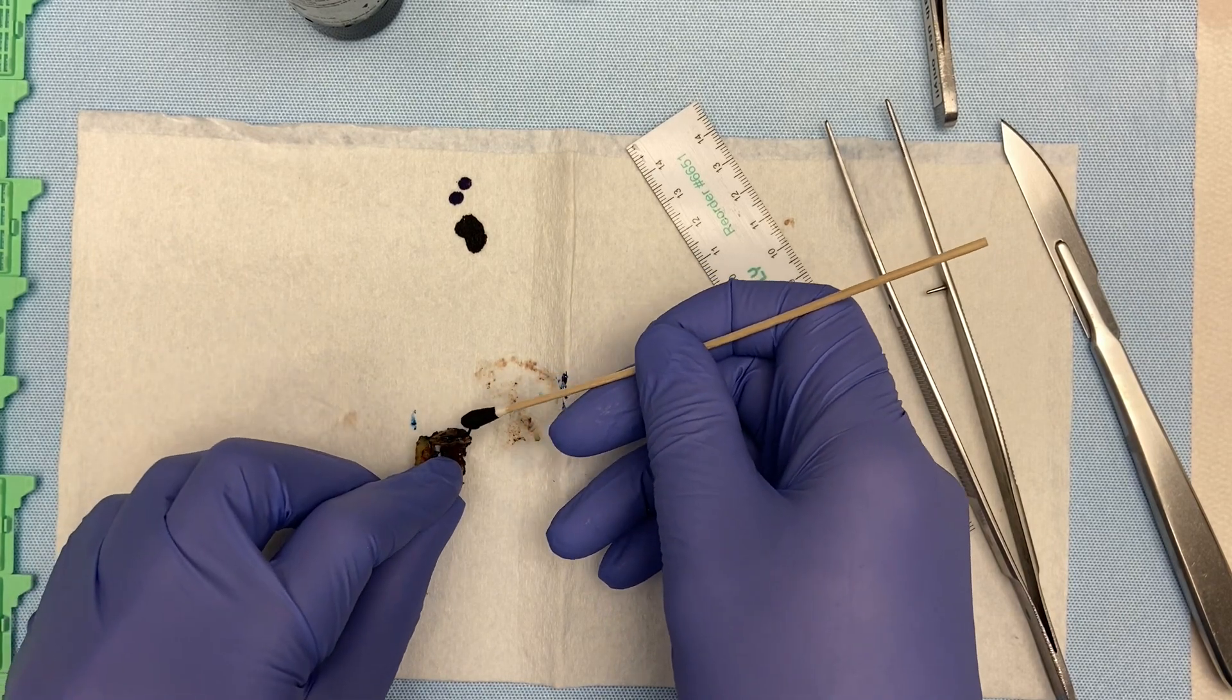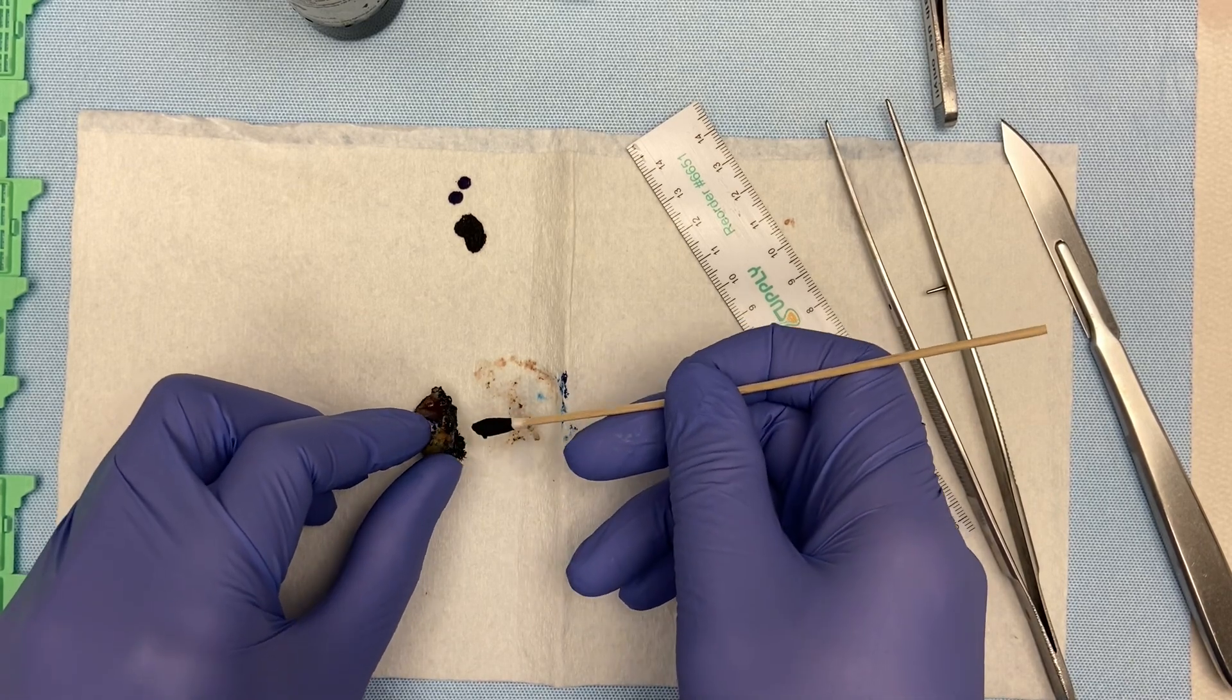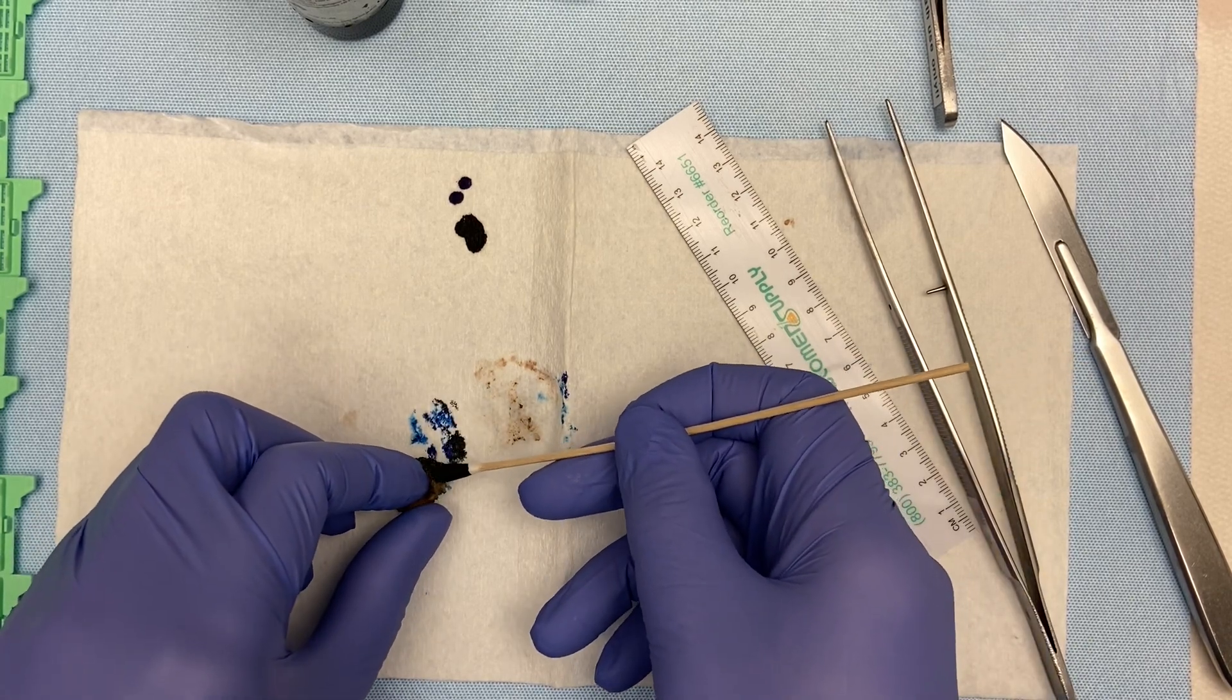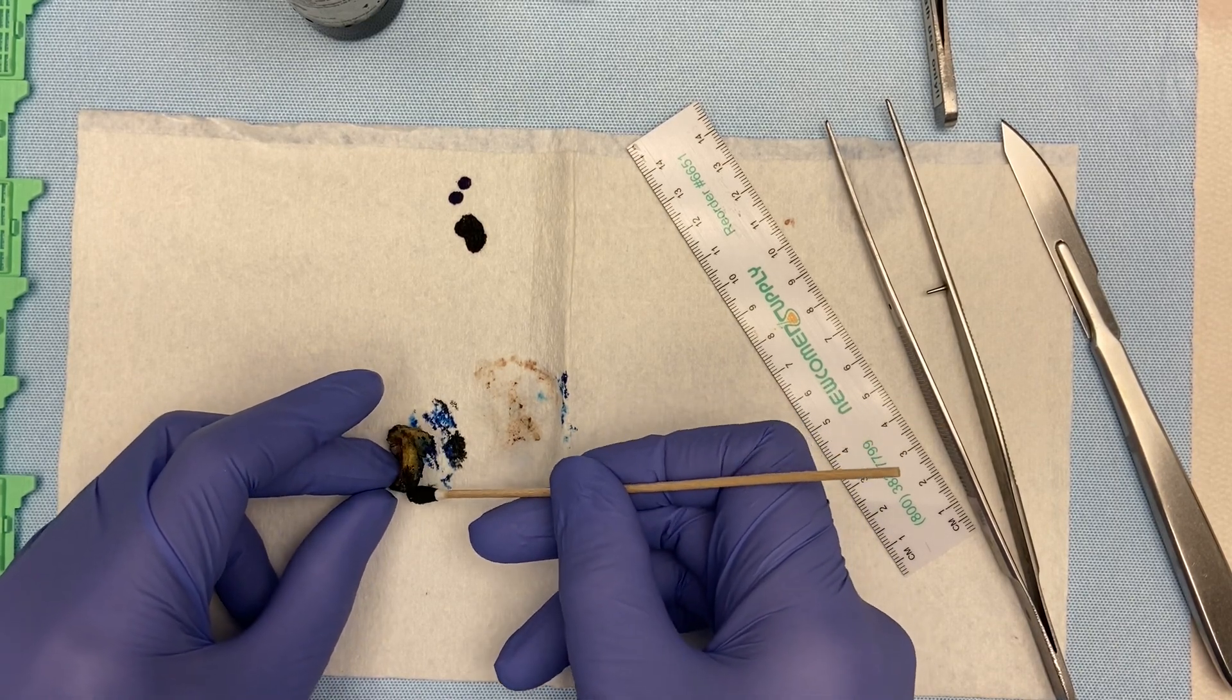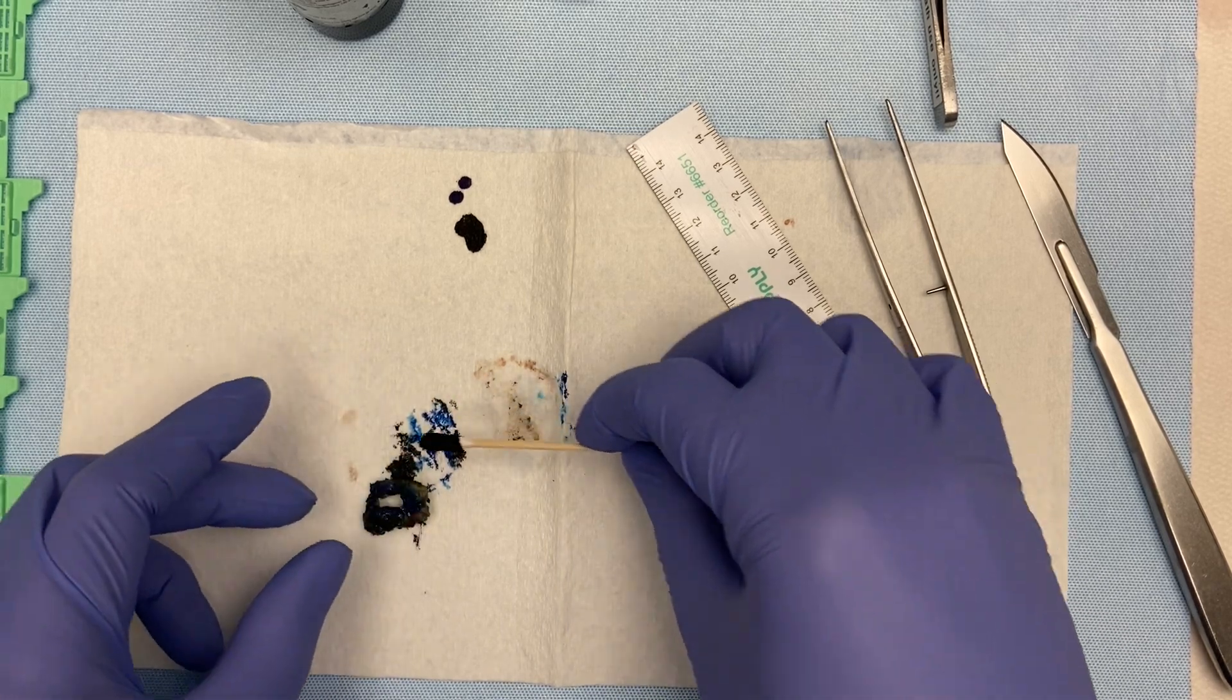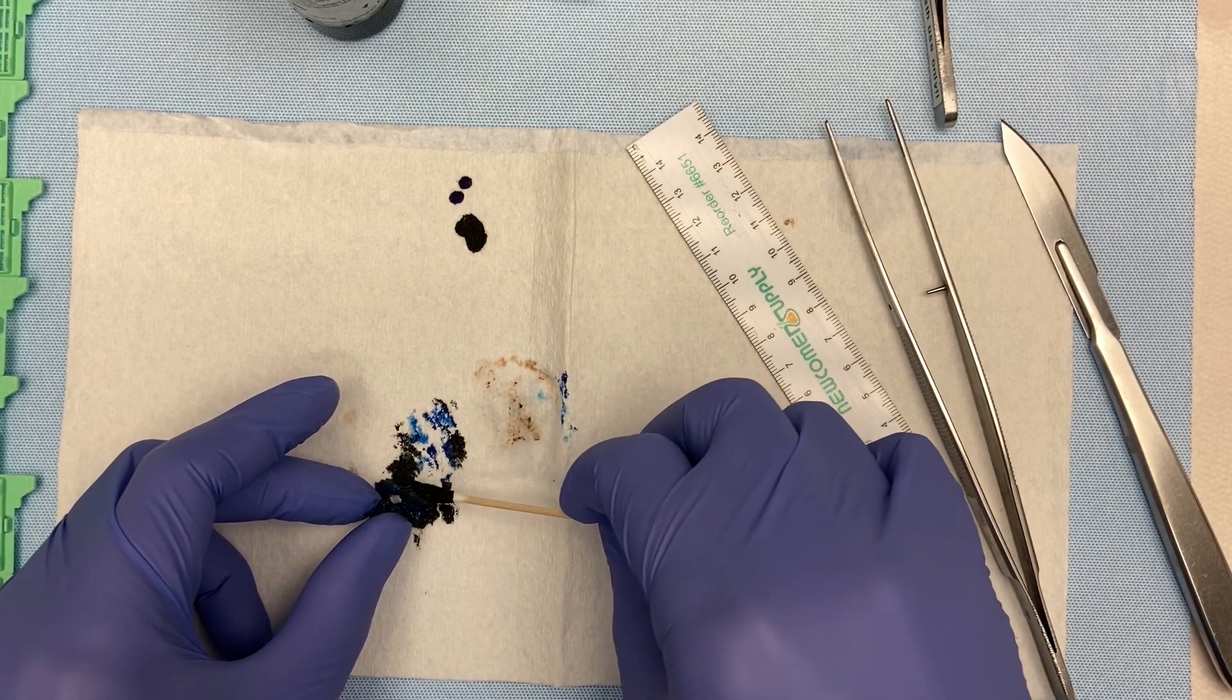Again, I still like to have things oriented. It just makes things easier. That way, when a colpo biopsy at three o'clock was positive previously, then I should expect the LEEP to show the three o'clock to be positive. It just makes a nice report, but we can't make the gynecologist do oriented every time. So, we just do the best we can.